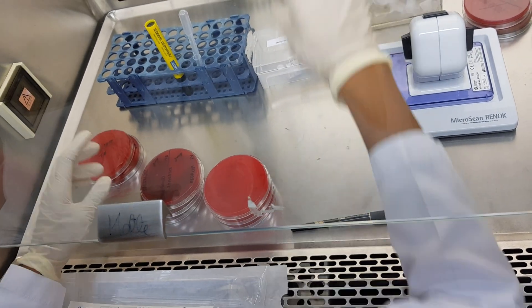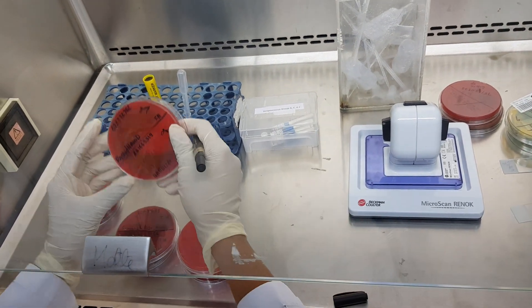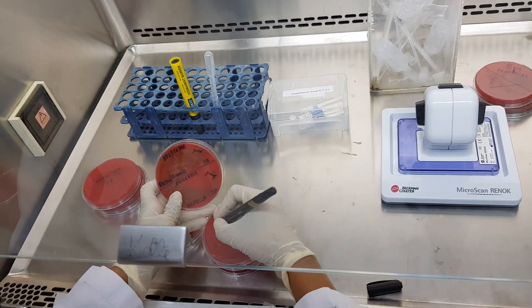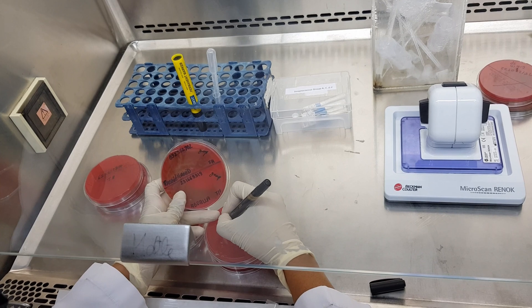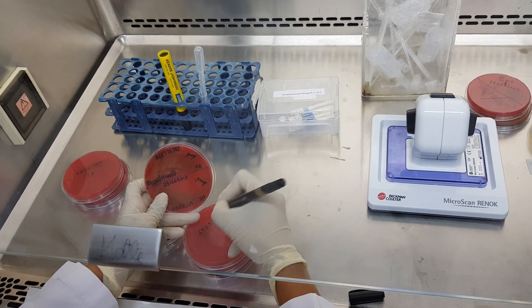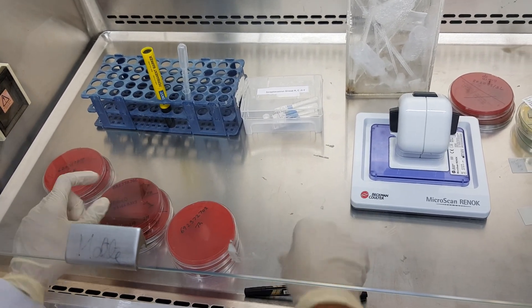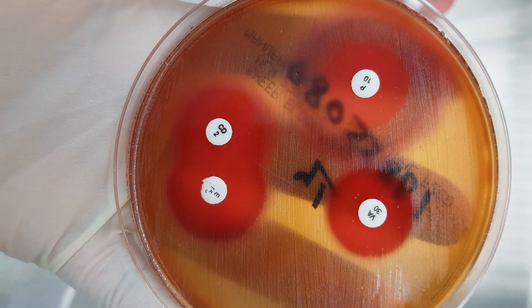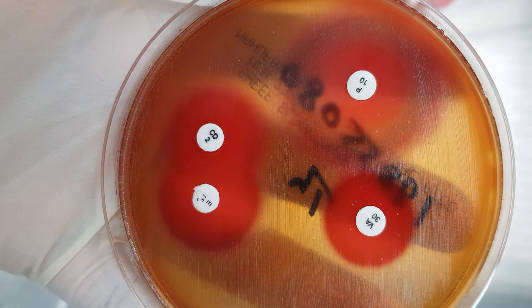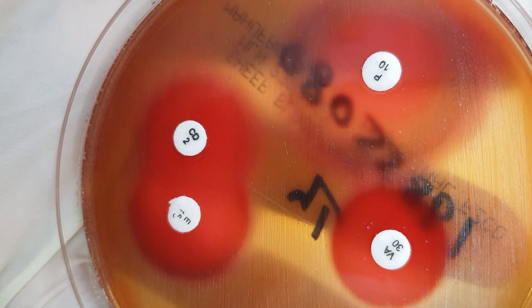The antibiotic discs are then placed on the plates, which are incubated at 37 degrees Celsius for 24 to 48 hours. After the bacteria have grown, you can see a clearing around the antibiotic discs called the zones of inhibition.